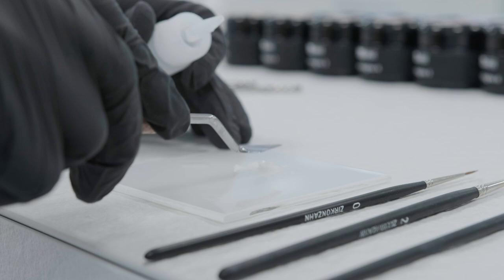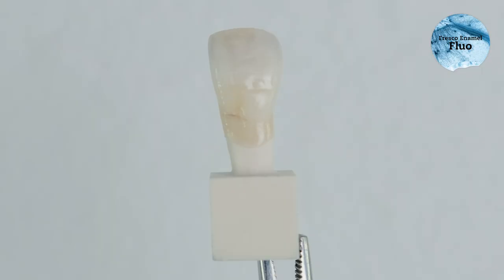For a natural fluorescence, you can apply fresco enamel fluo even after firing.